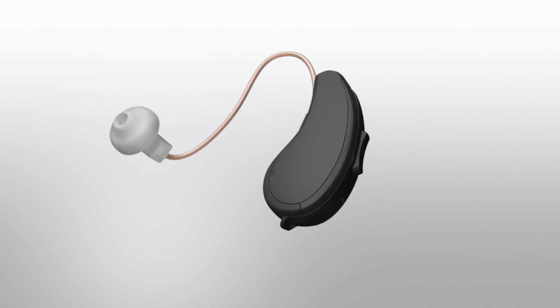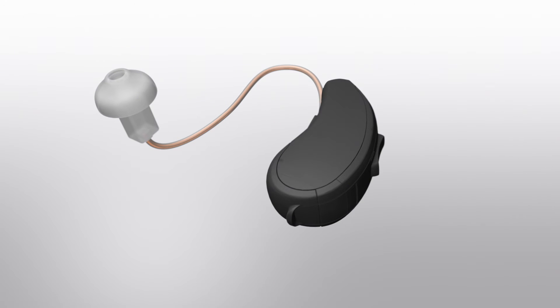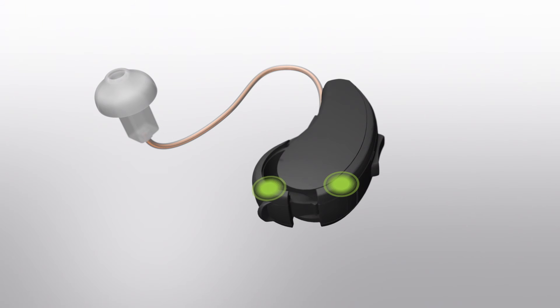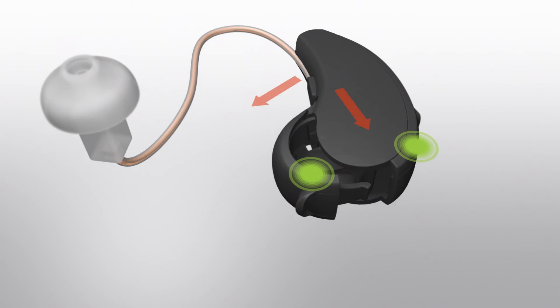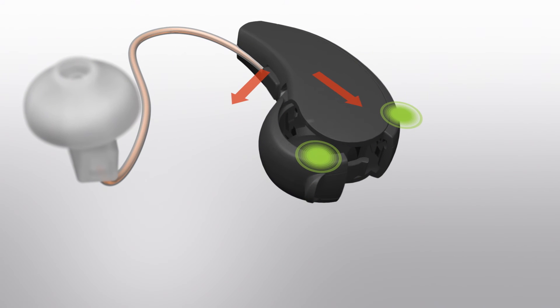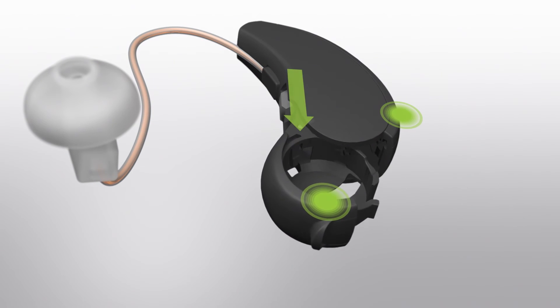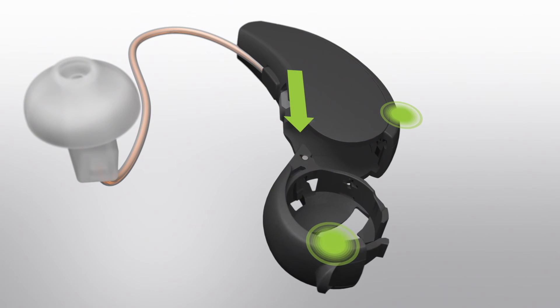Start by opening the battery door and place one hand on the body of the aid and your other hand on the battery door. Simply pull the door away from the body of the aid. Try not to stress the hinge by pulling at an angle and pull directly away from the aid in a straight line.